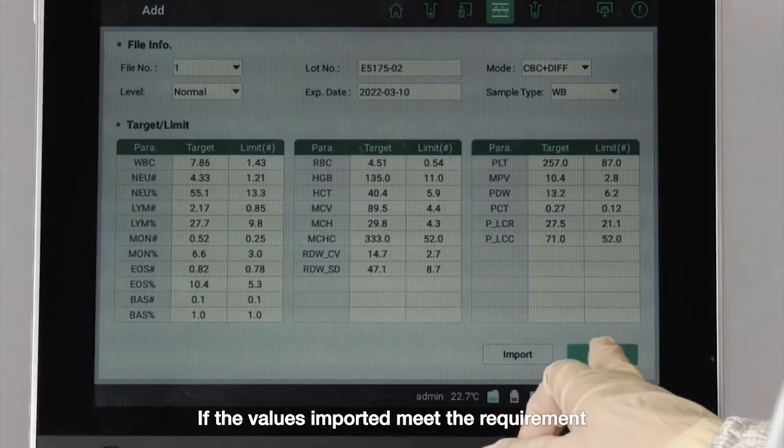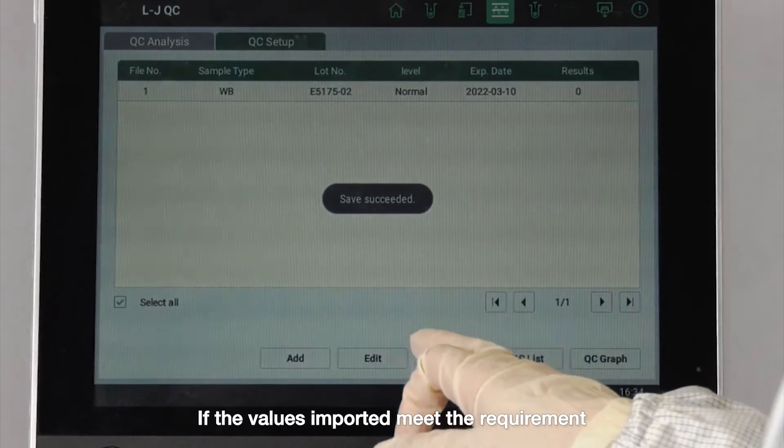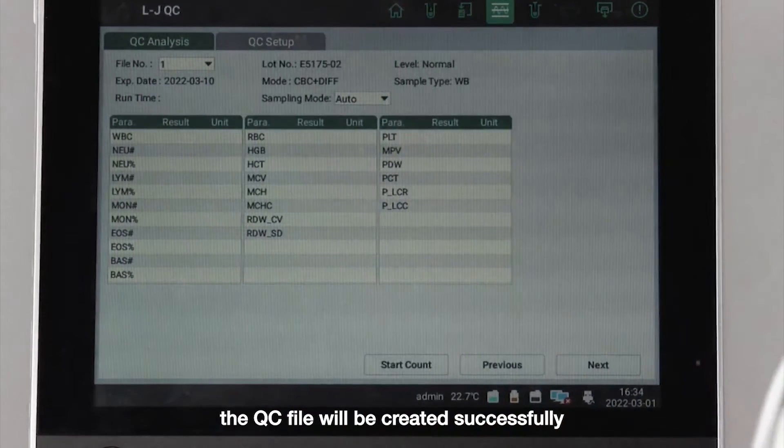Press save. If the values imported meet the requirement, the quality control file will be created successfully.